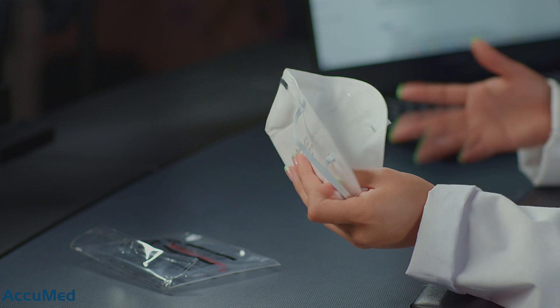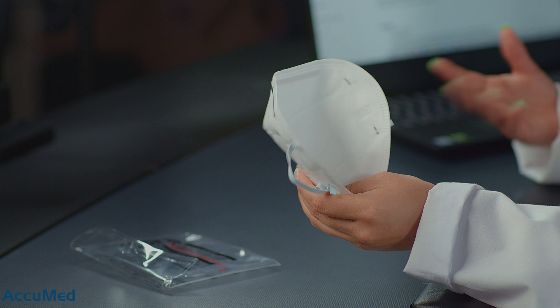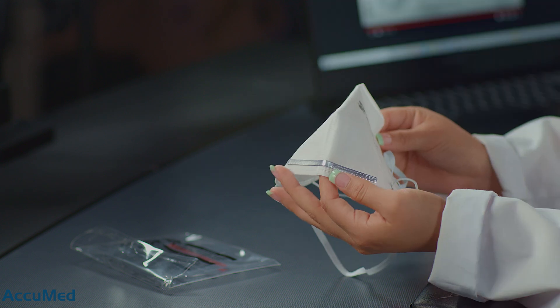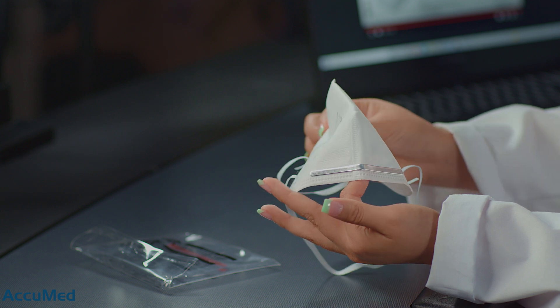Initial thoughts just by touching them — they do feel very thin and papery. They don't have the same quality as other 3M respirators we've tried before. This is how the nose wire looks. I personally don't like the nose wire being outside of the respirator. I feel like the straps could snap at any time when putting them on or taking them off, and that would hurt.